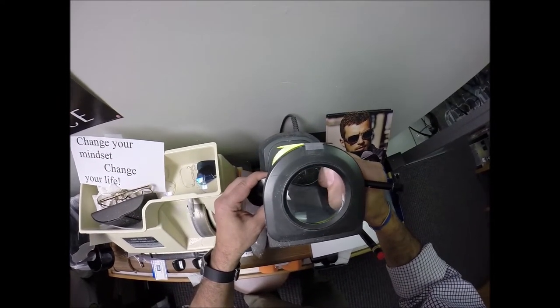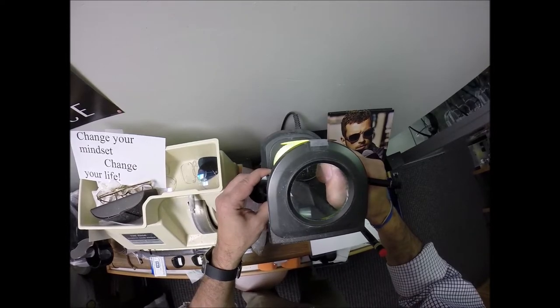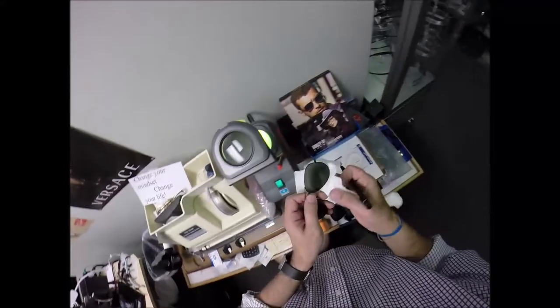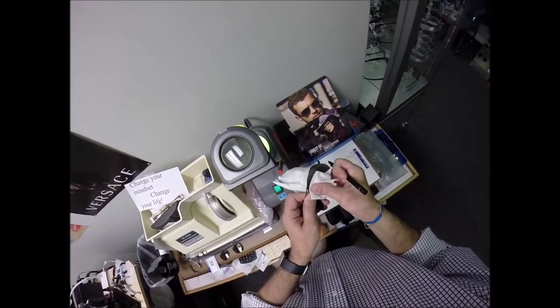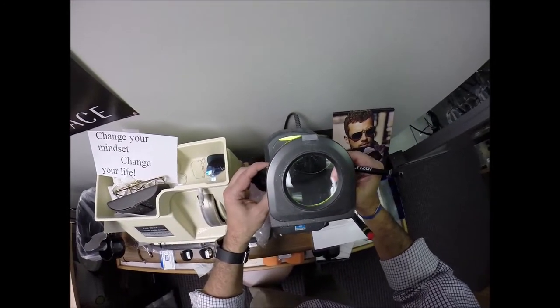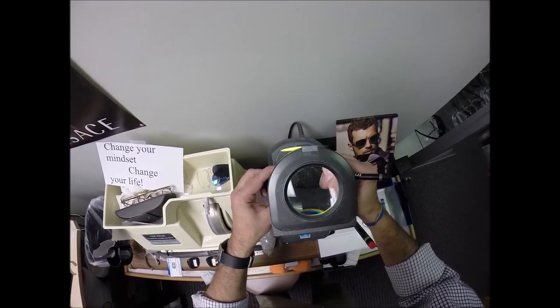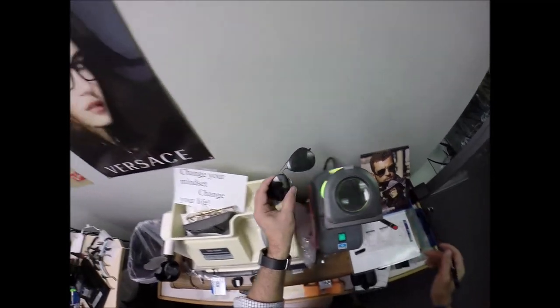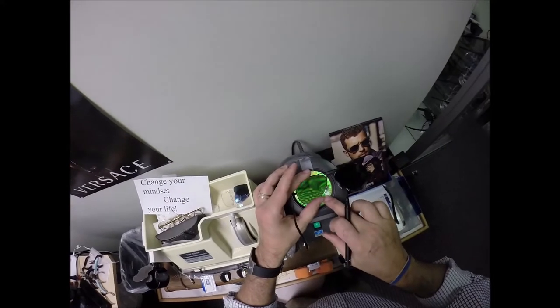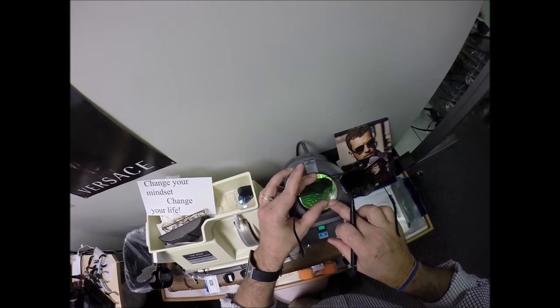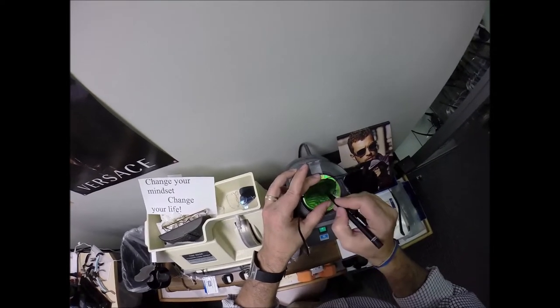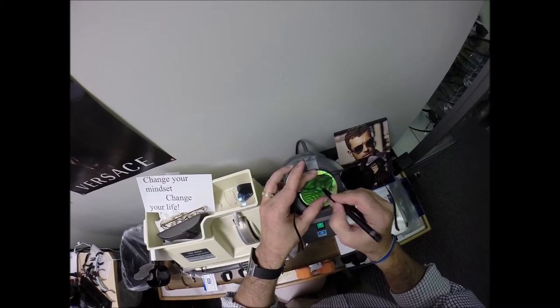Okay somewhere on here is a dot, there it is. Little tiny laser engraving. Still a little moisture on the lens, let me dry that off, just a little bead of water will throw me off. There's that one. Do that little layout. Layout come and I want to go home, no seriously I want to go home.